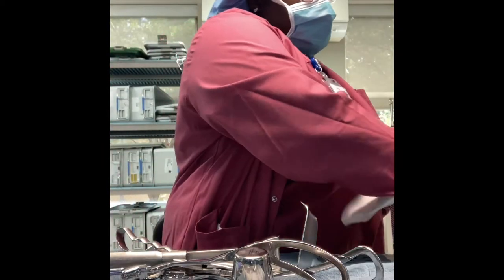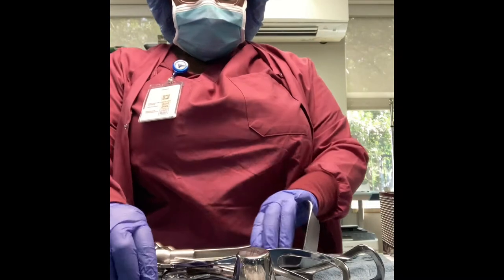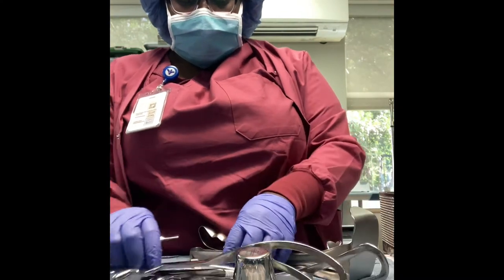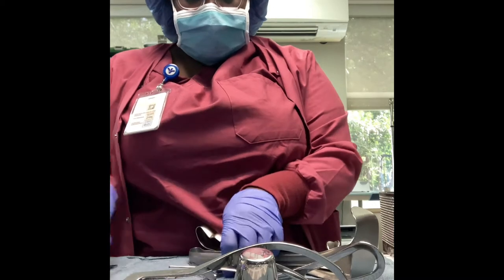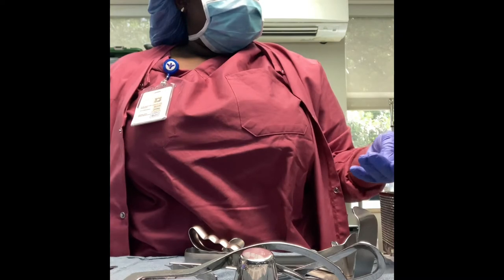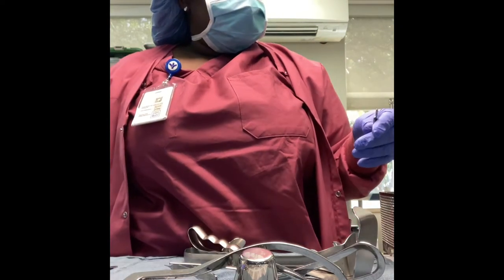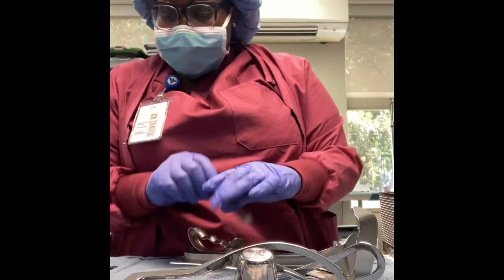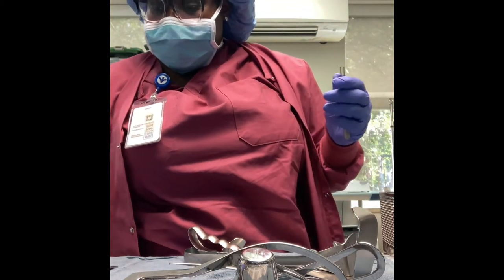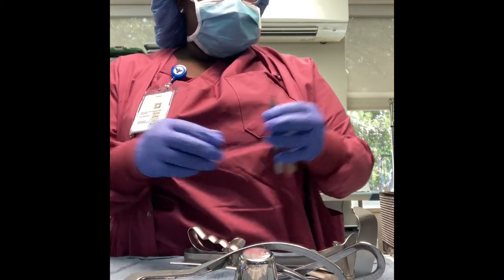Now I'm about to do the bottom of the tray. On the count sheet it will have things like 'stringer' or 'bottom of the tray,' so these instruments go on the bottom of the tray — these are mostly your heavy instruments or small instruments that go on a silicone holder. As you can see I'm just checking the forceps, making sure they're not crooked and don't need repairs.